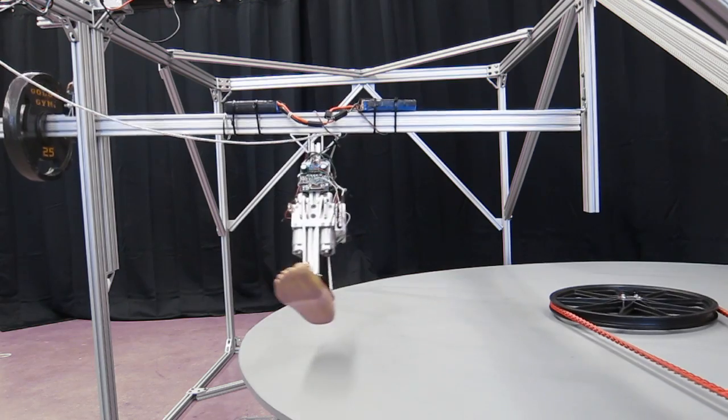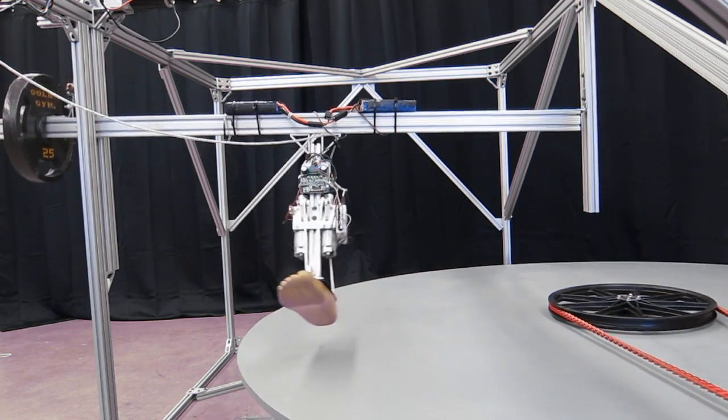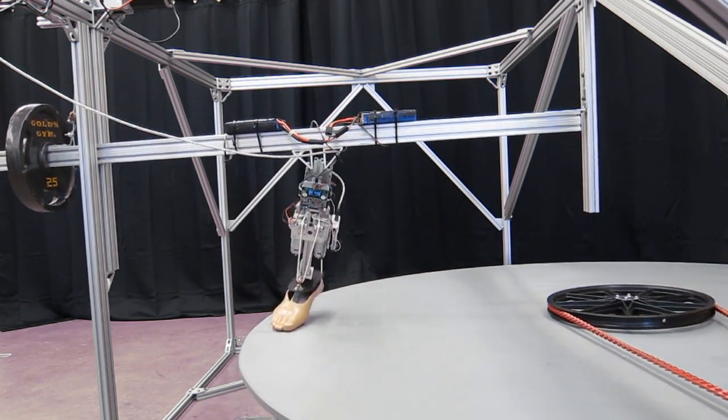Powered prosthesis should be lightweight and able to apply adequate torque at the ankle joint.